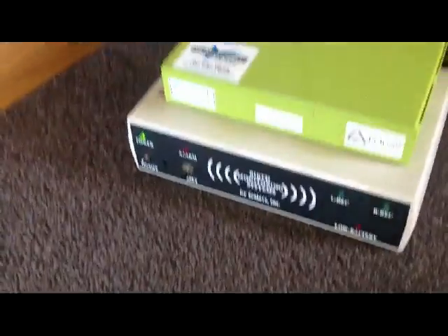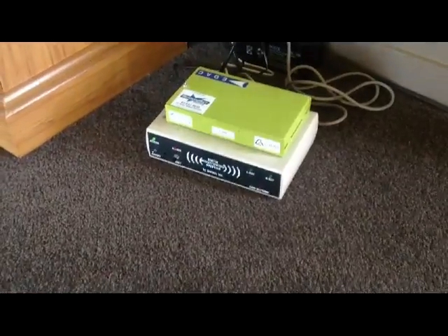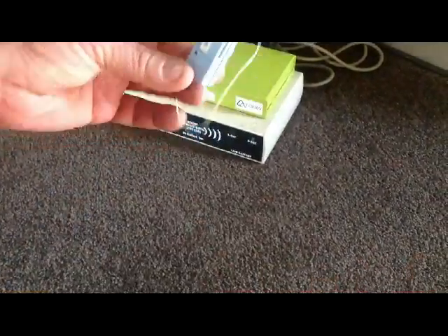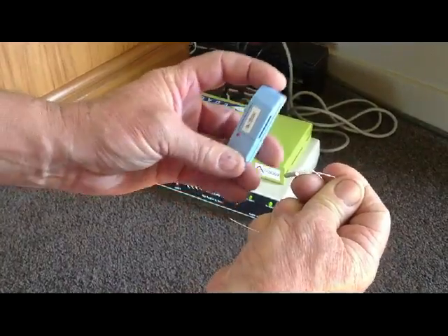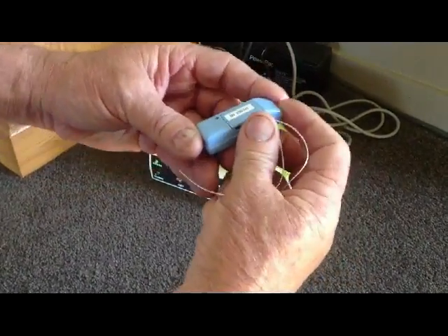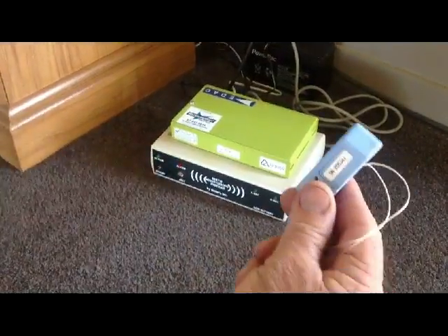Here's the little box that's in our bedroom — the receiver — and the little green box on top is the telephone attachment. Here is a typical foaling alarm. We number them so we know which one we've got. You see that magnet comes out, sets that alarm off straight away, and it's a pretty simple method. Switch that off, switch it on again, and it reactivates.